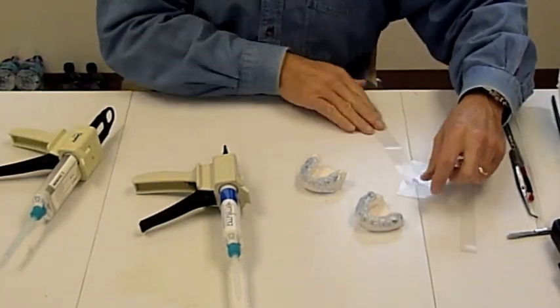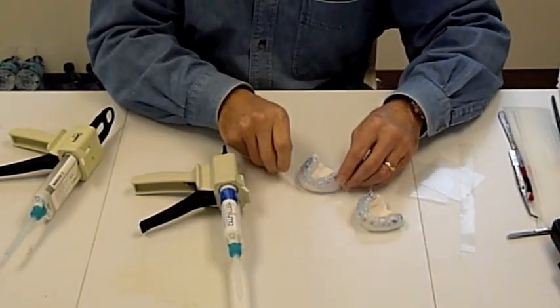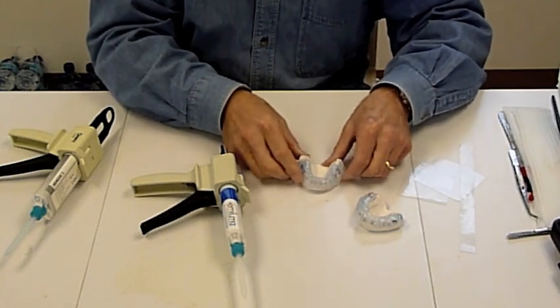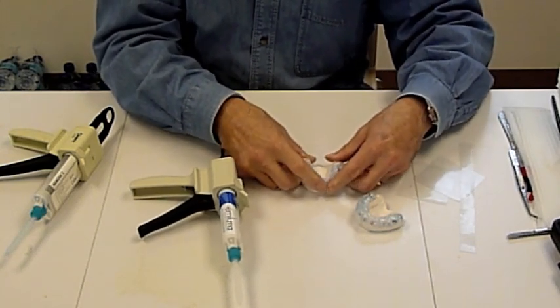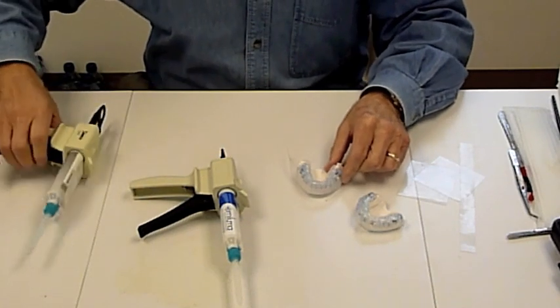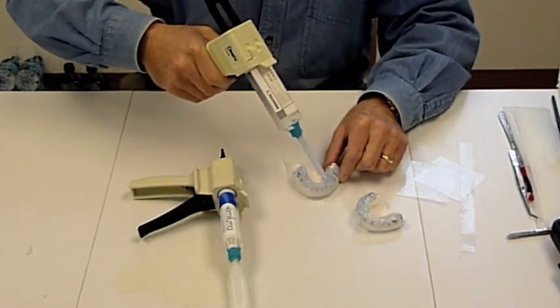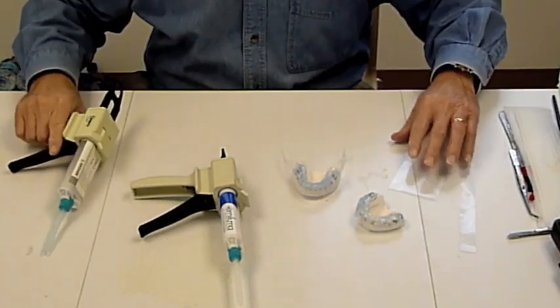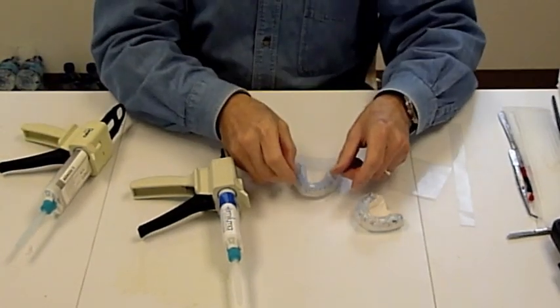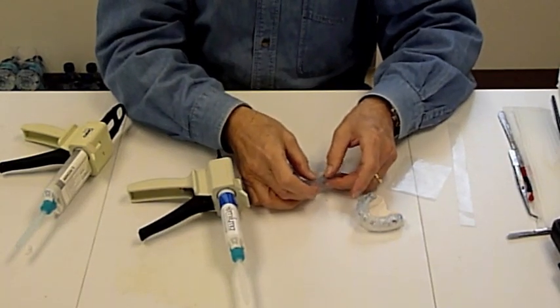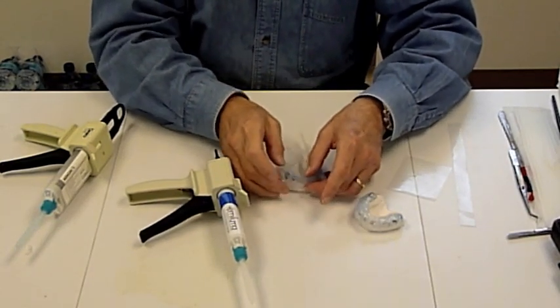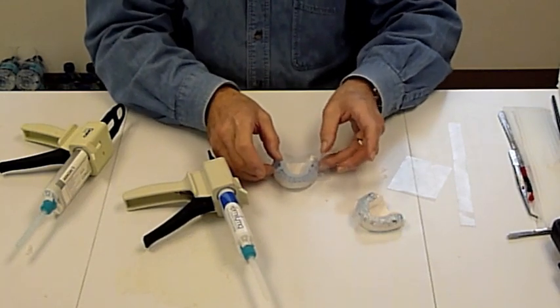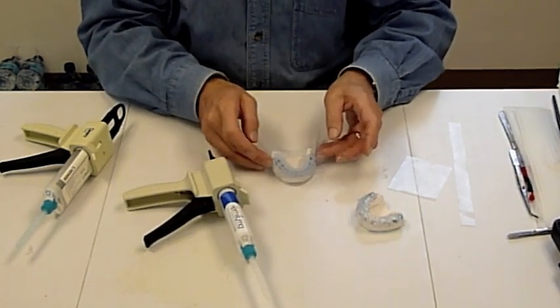Now we take our plastic sheeting and create the rest of the tray, moving that around to create the tray there. We'll fill the rest of it then. A piece to go over the top, forcing the memosil to create a nice flat surface.